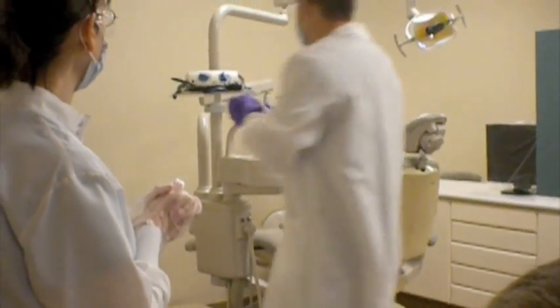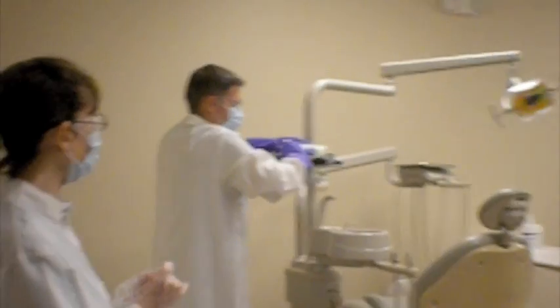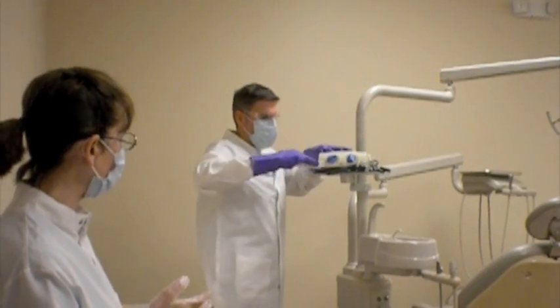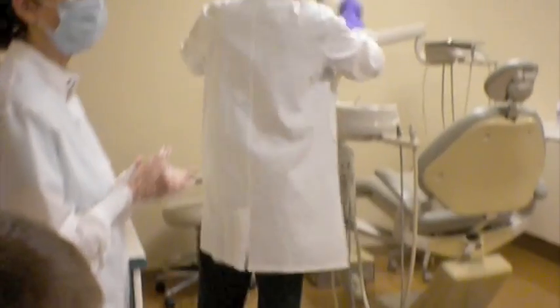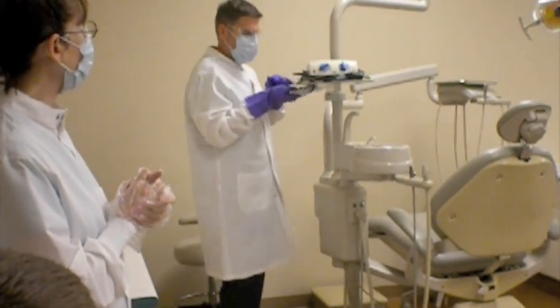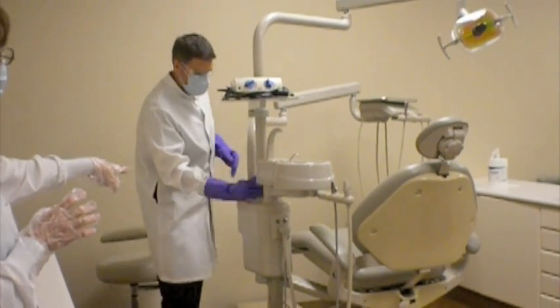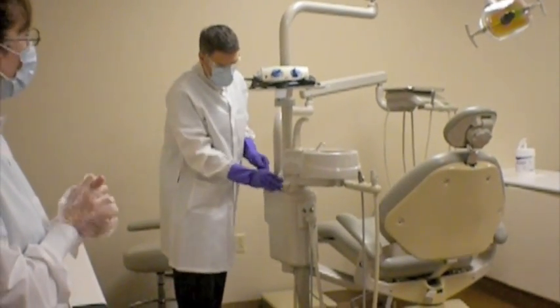He'll do the top of it, the sides of it, the cords around it, and the base on which it sits, top and bottom. If those cords were dangling down, he would wipe the cords to the base of what we call the evacuation box right here as a top surface, but they're not. They're wound up. So again, continuing underneath, remainder of the light pole right to the knuckle joint at the evacuation box, including that little knuckle joint to finish the light pole.